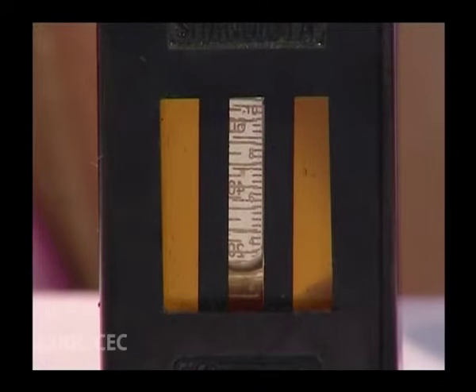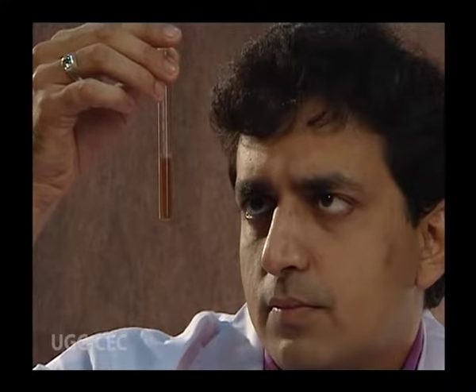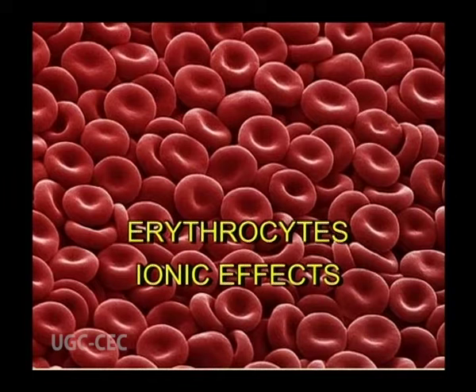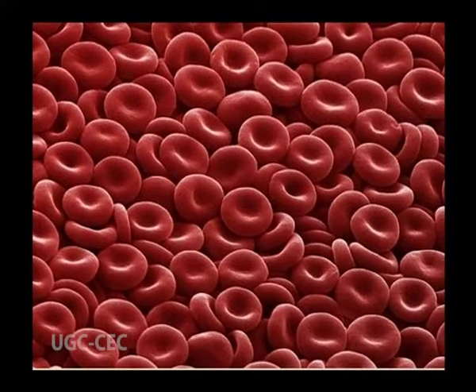In certain cases where a person is severely ill or dehydrated, medical professionals advise giving an intravenous infusion of 0.9% saline. Have you ever wondered why 0.9% saline is given? Today we are going to perform an experiment to find out the answer. Before going into the detail, let's find out what red blood cells are, what functions they perform, and what the effect of ions on red blood cells is.